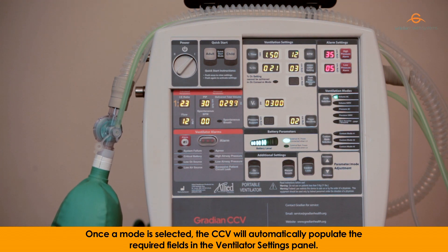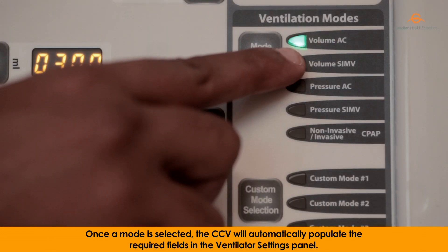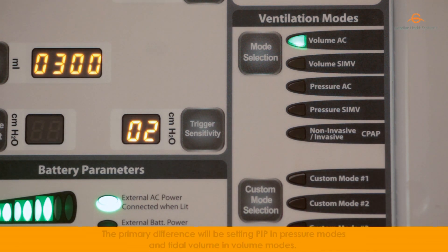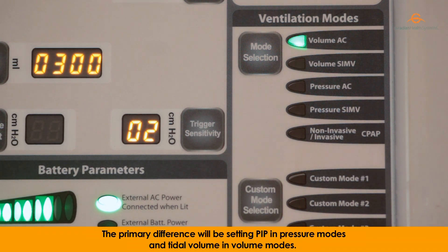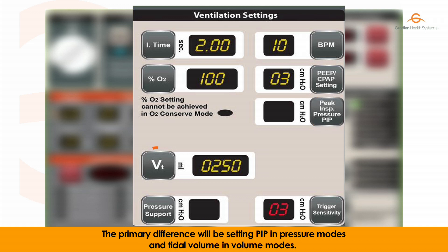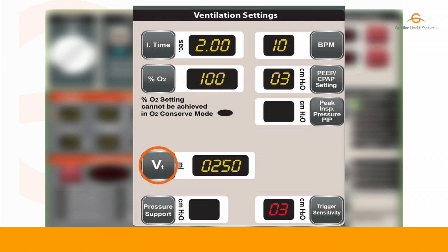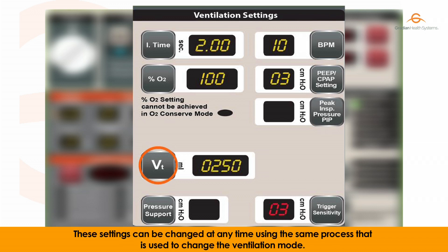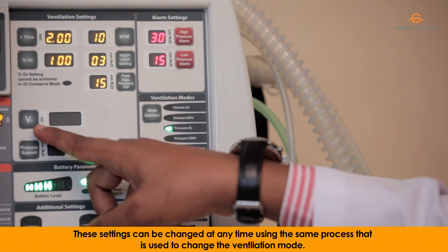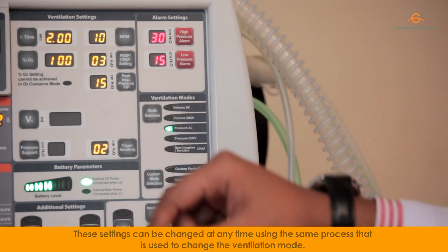Once a mode is selected, the CCV will automatically populate the required fields in the ventilator settings panel. The primary difference will be setting PIP in pressure modes and tidal volume in volume modes. These settings can be changed at any time using the same process that is used to change the ventilation mode.